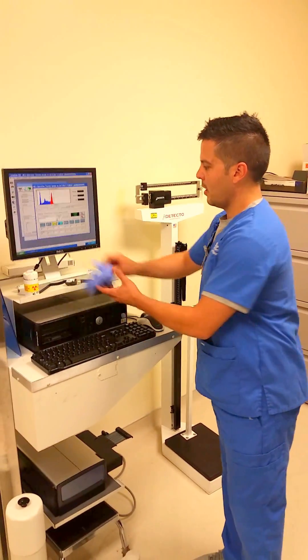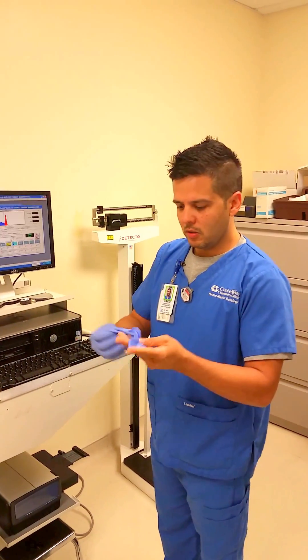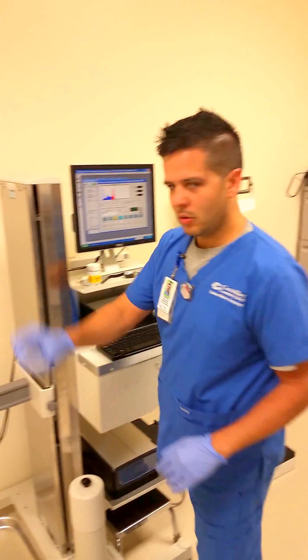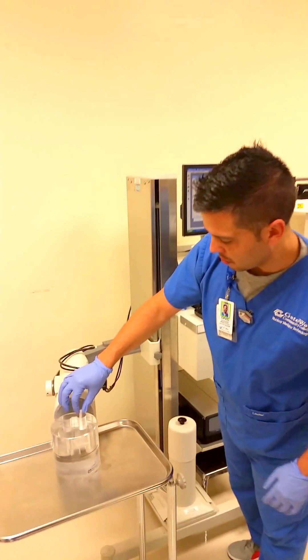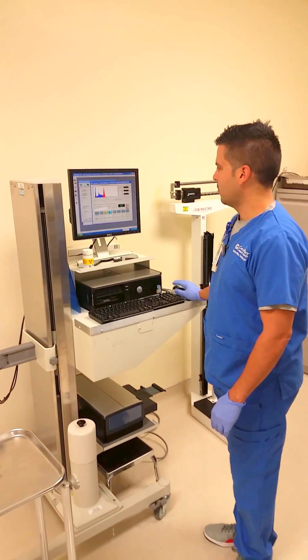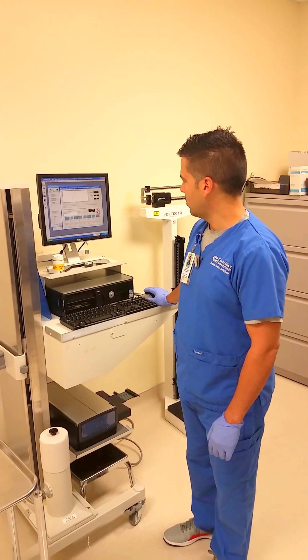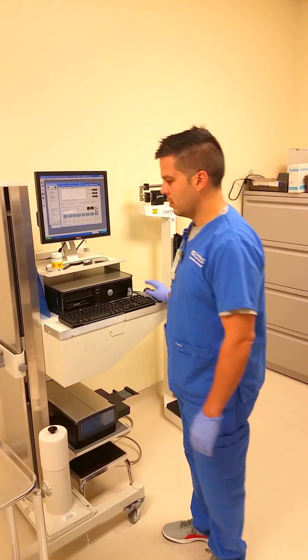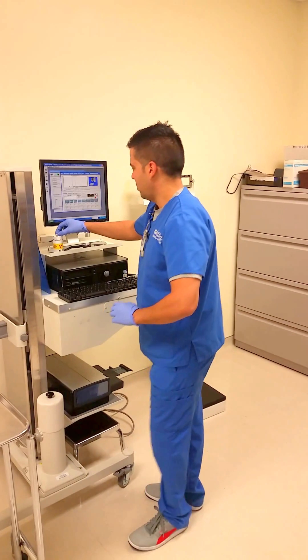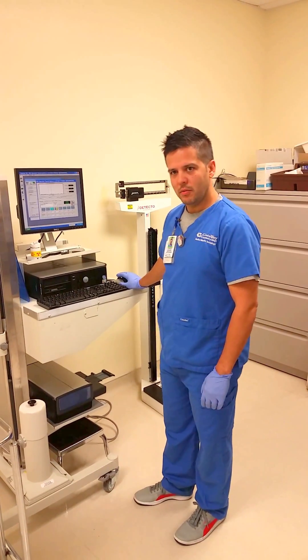I'm going to put my gloves on now that I have the patient set up. Normally the capsule is going to come in a little plastic vial that you can set into the phantom and put in front of the probe. This would actually be in a capsule vial, so I would count for two minutes. After that's done counting for two minutes, you take the capsule out and put it back in the vial so that you can take it to the patient. Then you count the background for another two minutes.